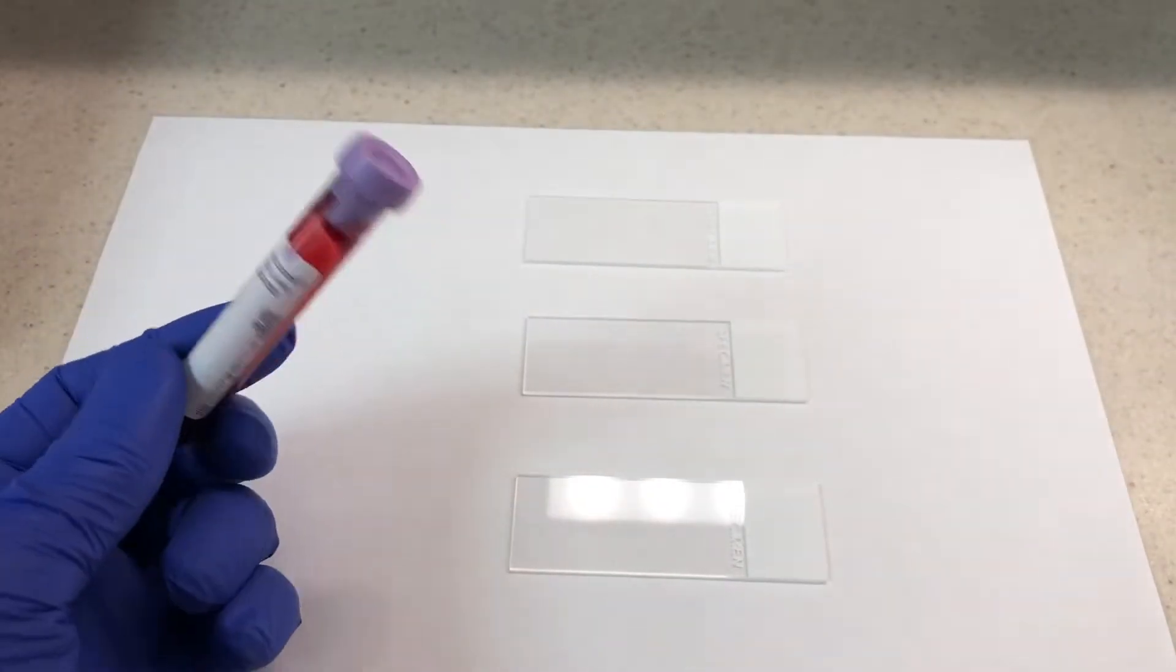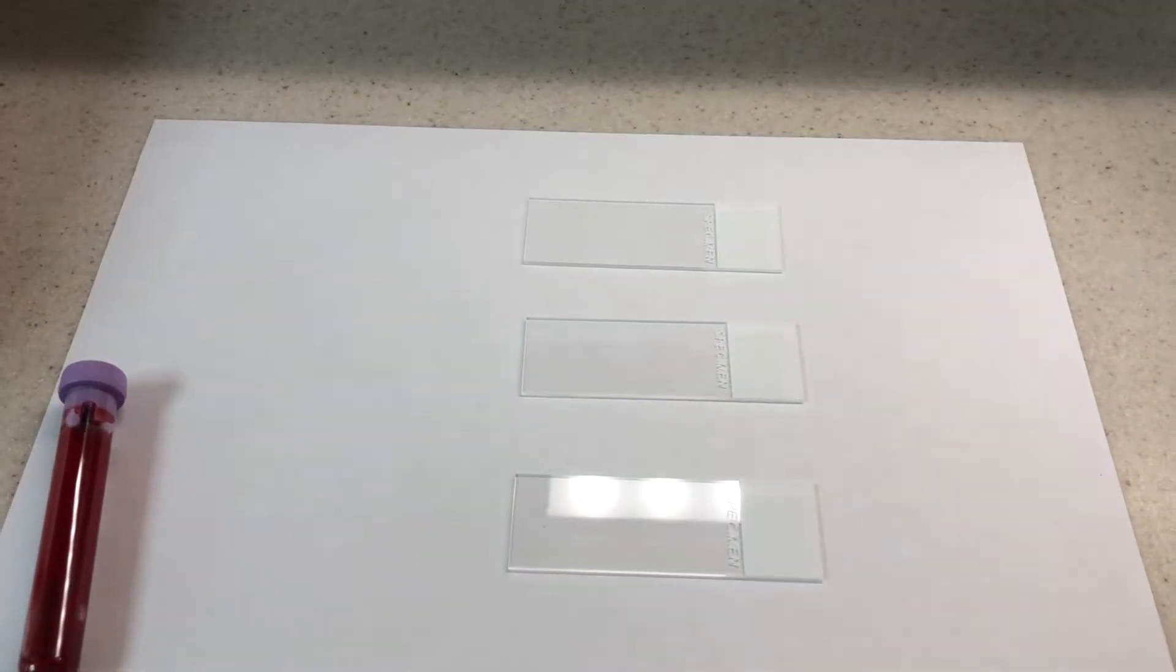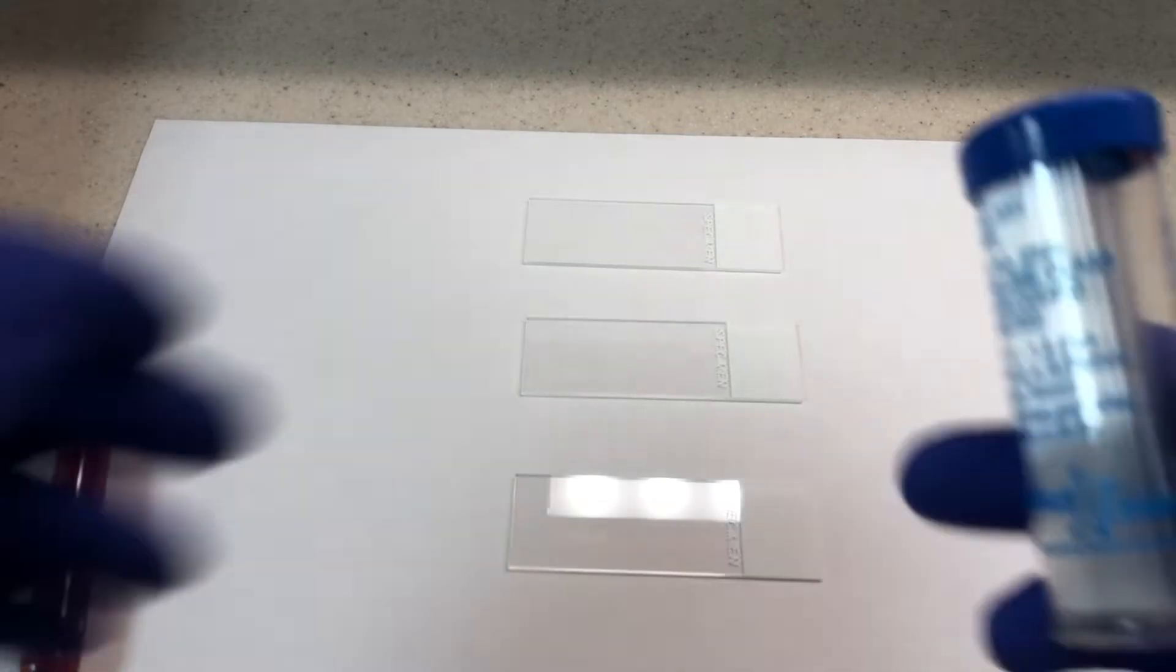In this video I'm going to quickly show you how to commonly make blood drops for peripheral blood smears. There's three ways typically that most people follow.